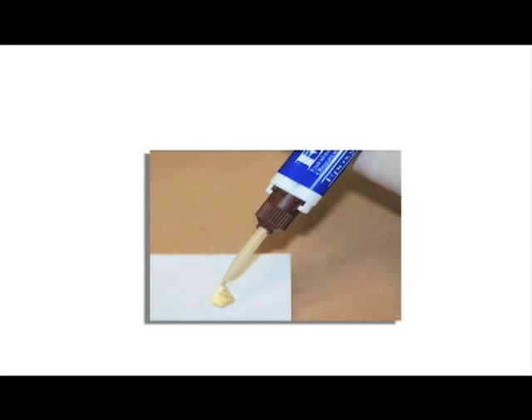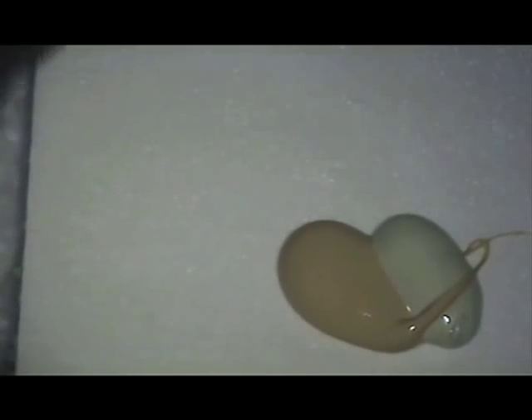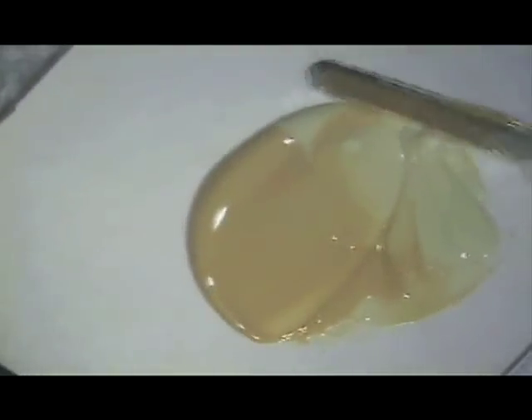Up to this point, we have shown the application of our original EasyFill epoxy resin cement. While we still have this cement, we now also have a second generation EasyFill cement called the EasyFill Express. It consists of two gels that can be auto-mixed or placed on a glass slab in equal lengths and easily mixed with a spatula. I prefer dispensing the gels in the unmixed state and mixing them myself, or more likely with the aid of my assistant. It takes about 20 seconds to mix thoroughly.